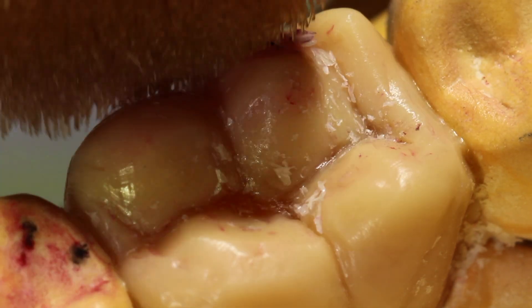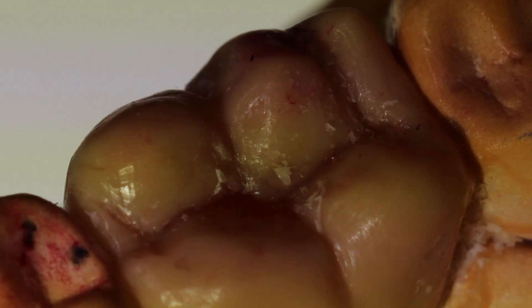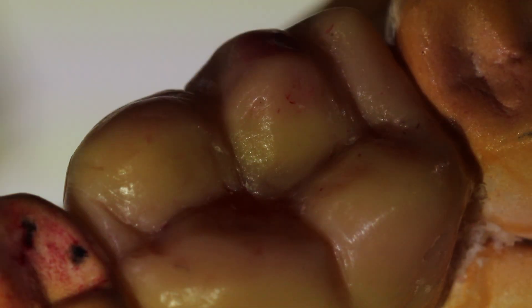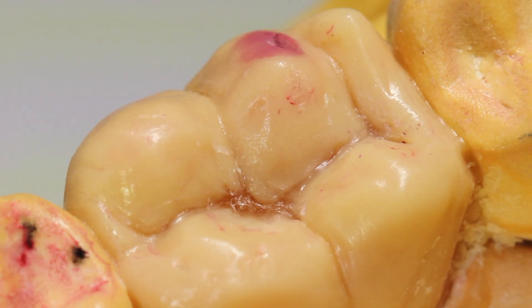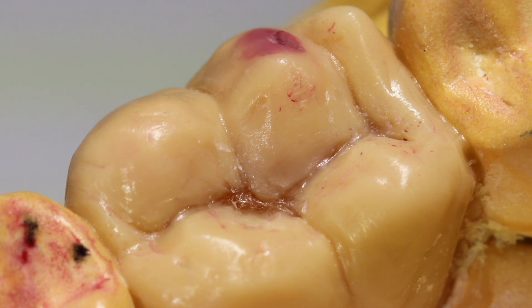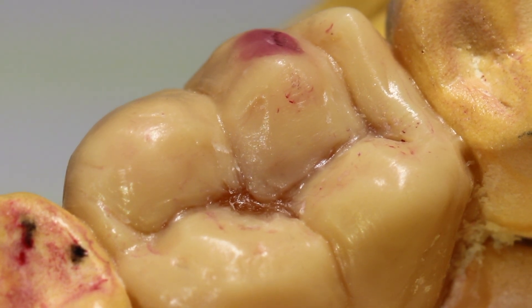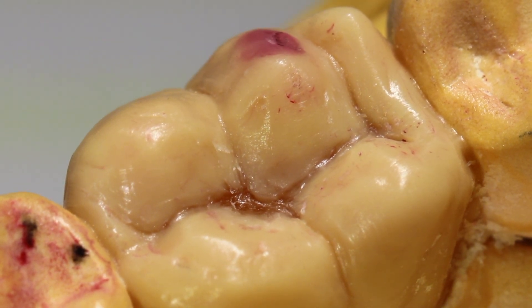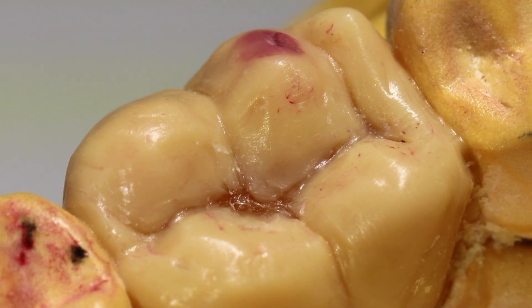The next instrument I don't usually talk about is the brush. Just give it a couple of swipes along the occlusal surface and along the sides of the tooth, and it gets all the debris out — now it's looking better. Remember to always give your tooth a quick brush before you show it to your instructors; they really appreciate clean work.